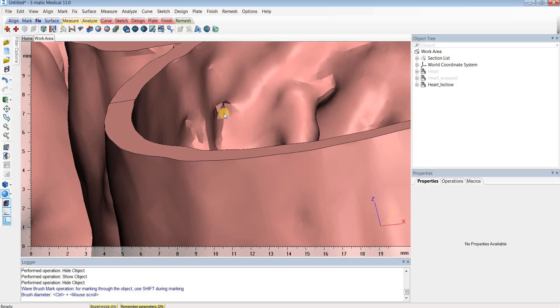In this video I'll show you how to fix these holes in a quick and easy way using 3MATIC, which is part of the MIMIC's innovation suite. But first, let's talk about the root causes of these holes or connections - there are really two different causes.